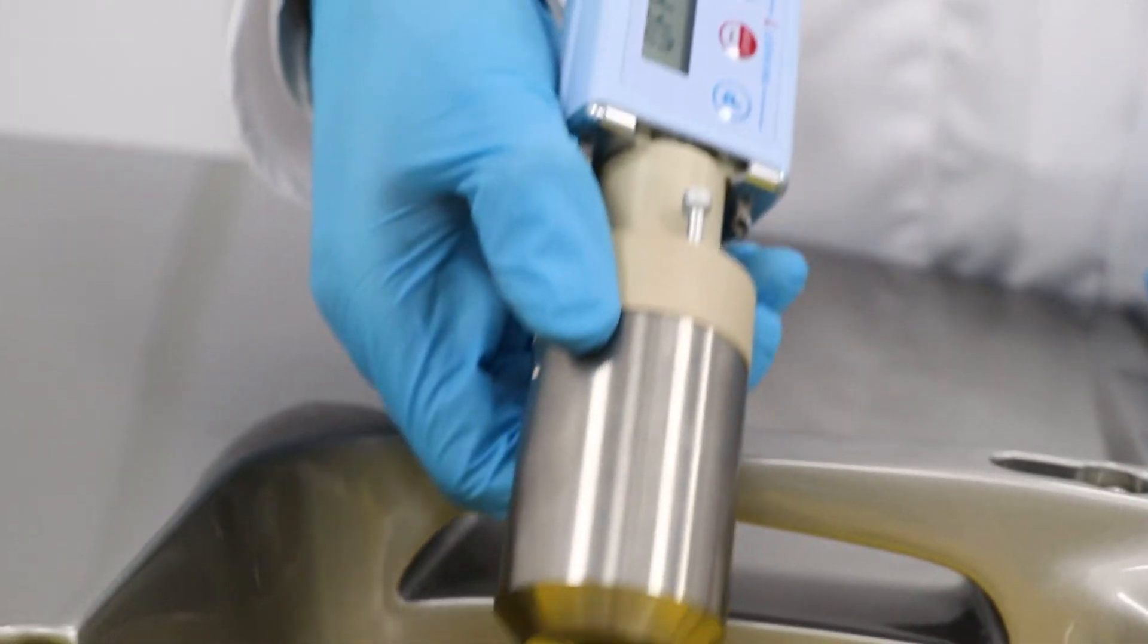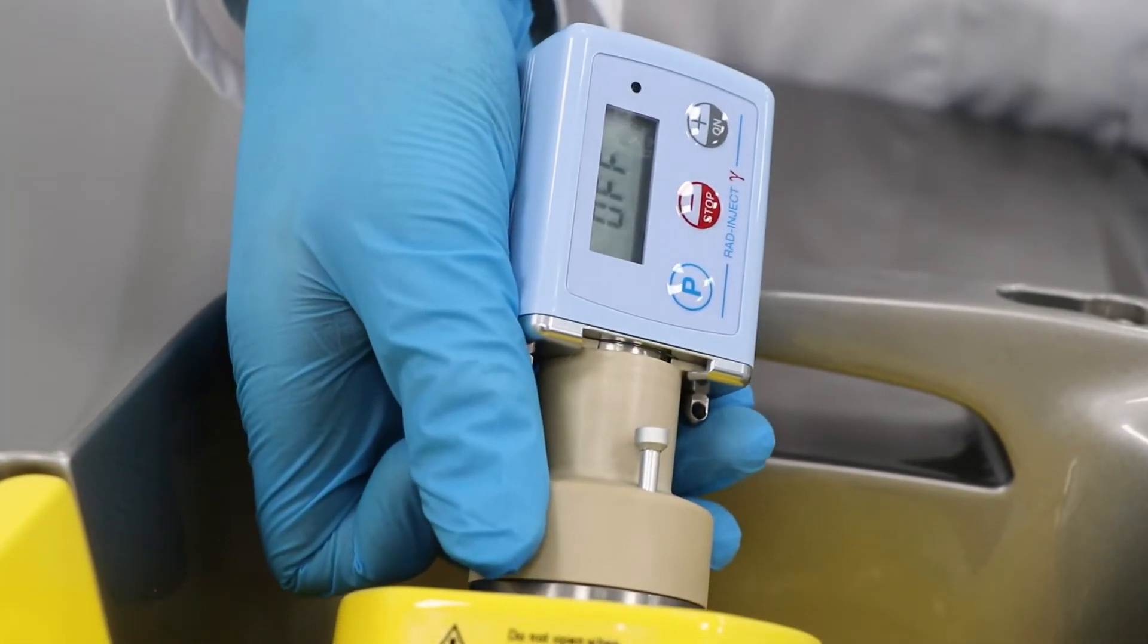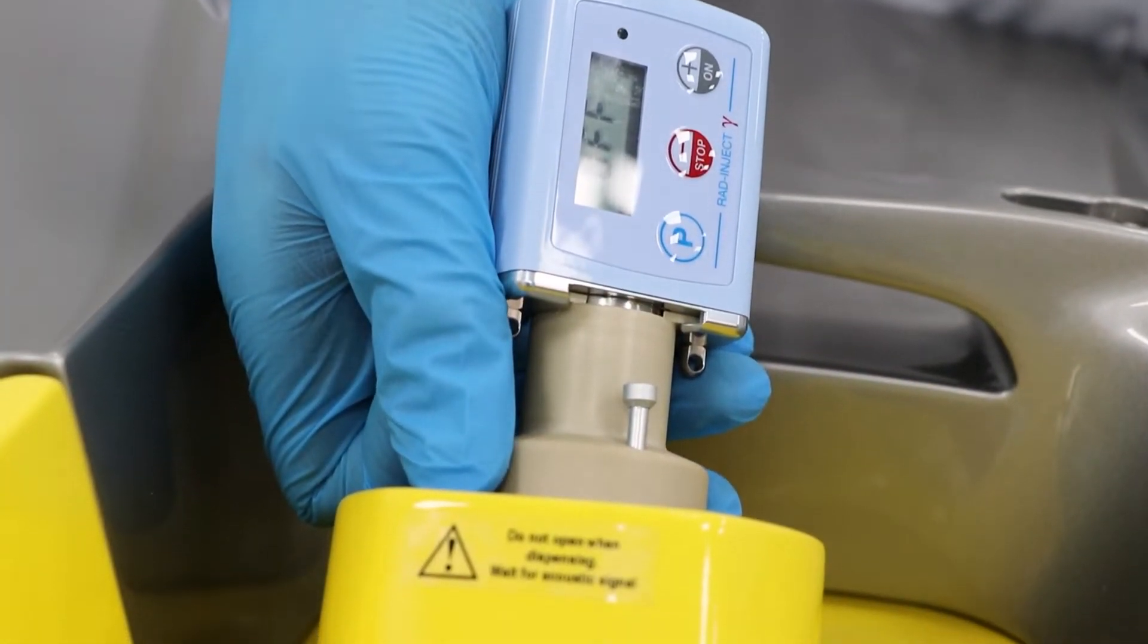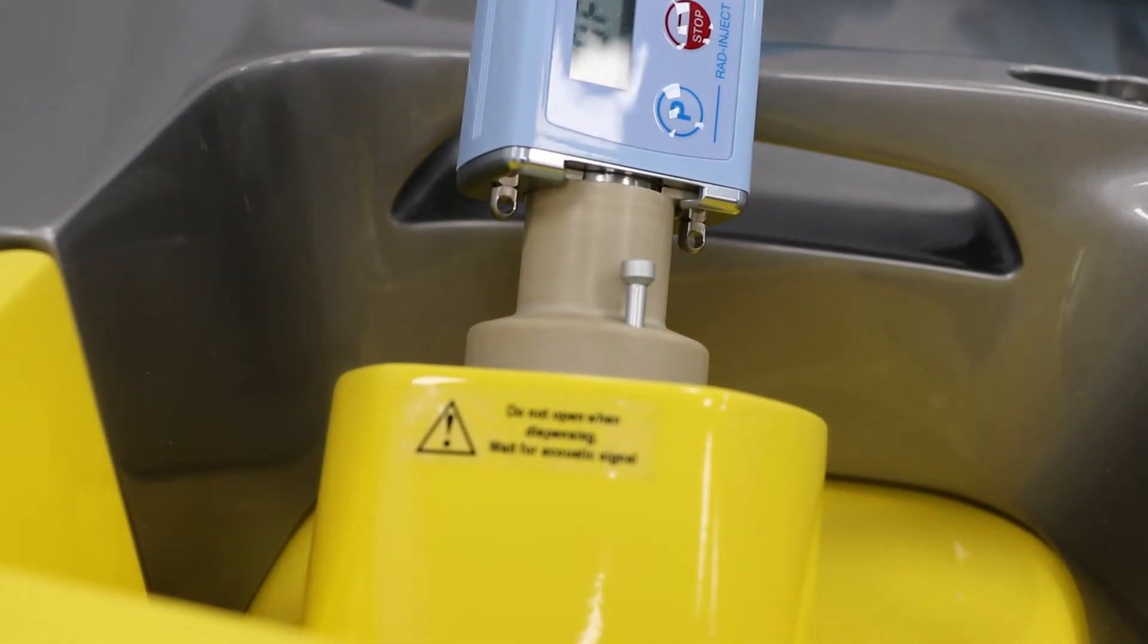Remote injection is made possible by using the rad inject, and this is the preferred option by current users. It is the smallest automated injector for radiopharmaceuticals, reducing operator exposure during the injection phase.